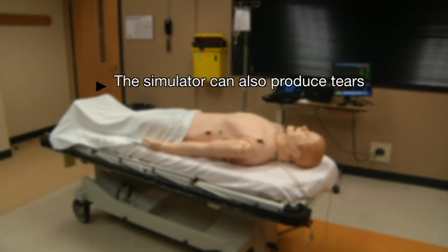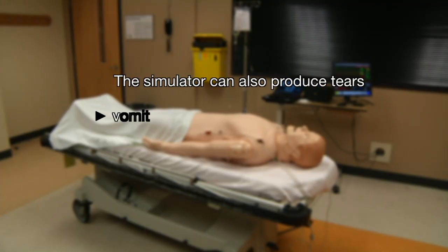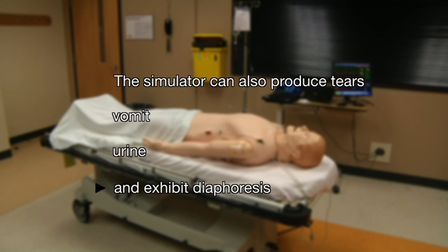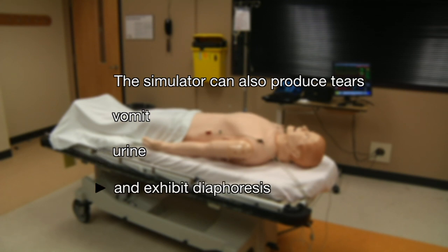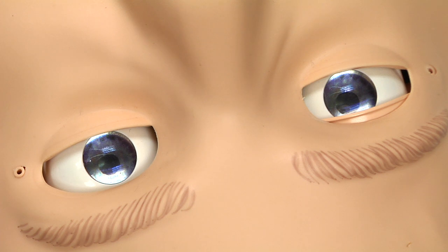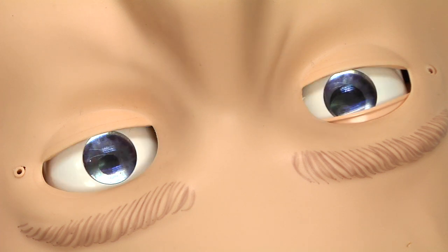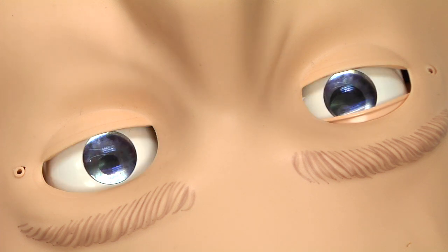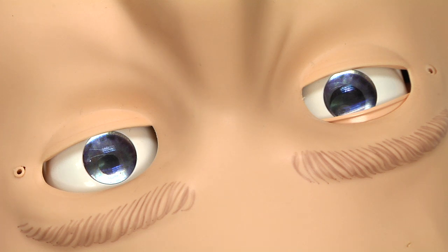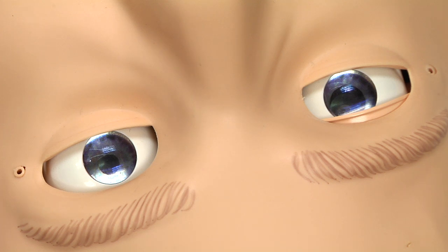The simulator can also produce tears, vomit, urine, and exhibit diaphoresis. Finally, full pupil reactivity can be emulated with bilateral or unilateral constriction and dilation. Response to light can be simulated asymmetrically.